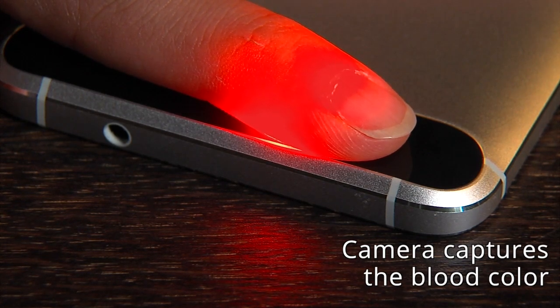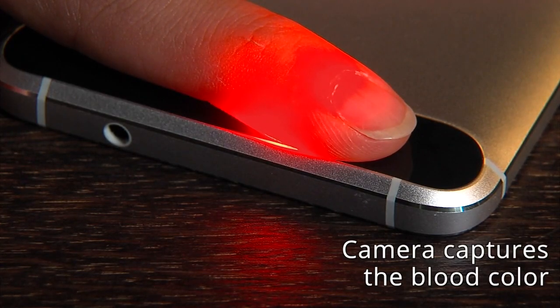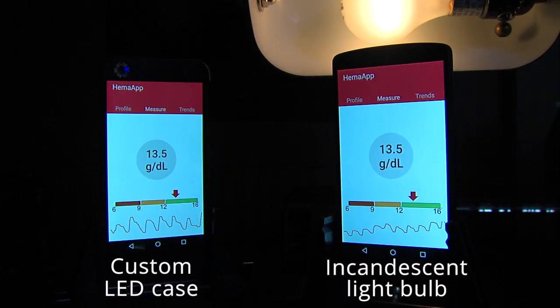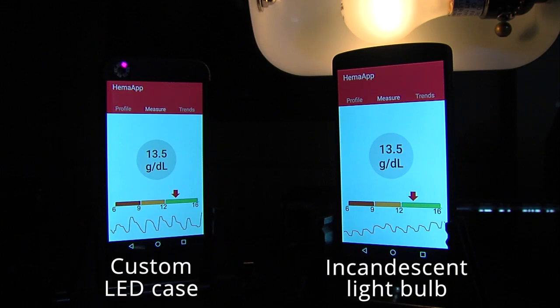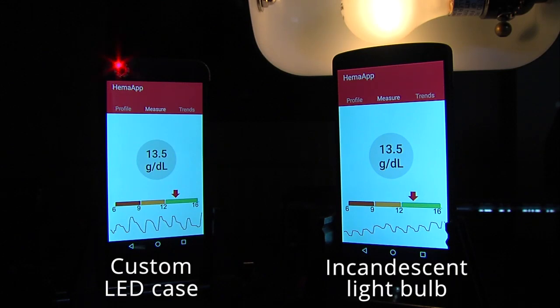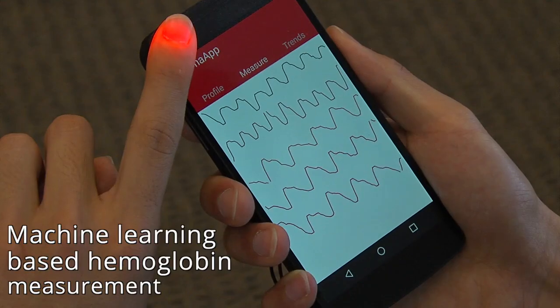The biggest challenge is exploring different lighting options depending on the resources the user may have available. It's conceivable that we can incorporate all the lights into a phone case, but we also found that the infrared spectrum of an incandescent light was a good alternative to a custom case.